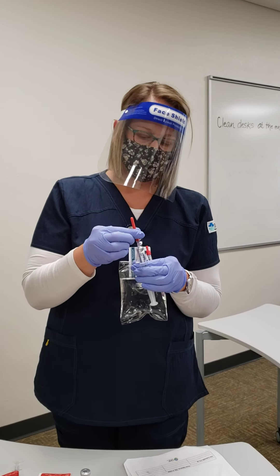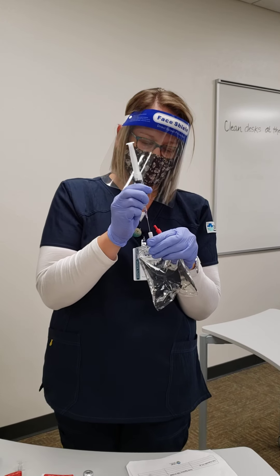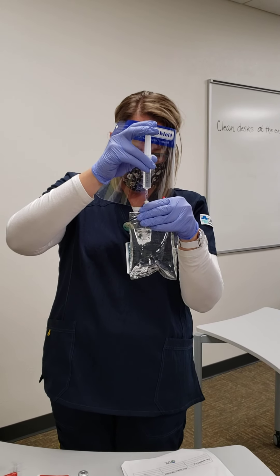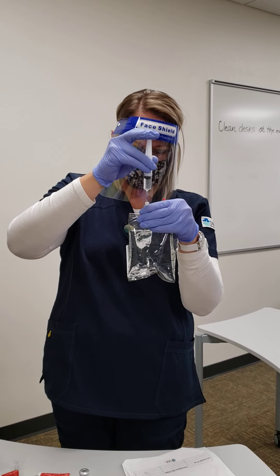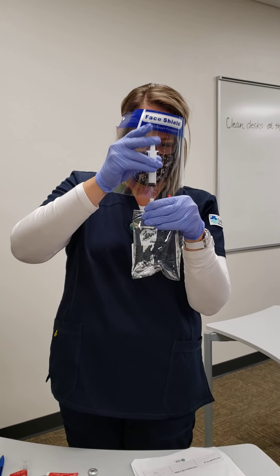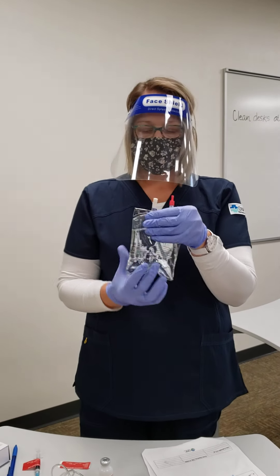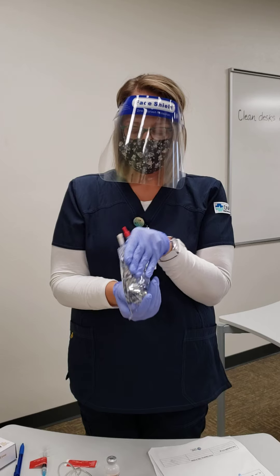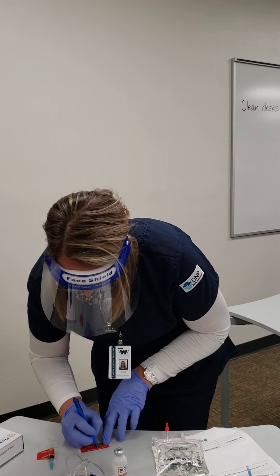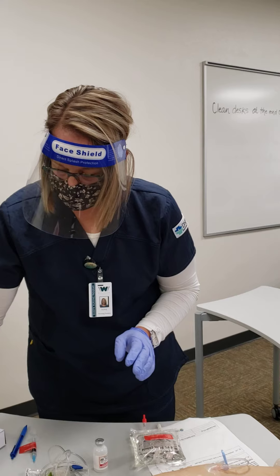Now I go ahead and take my needle and inject the potassium chloride into the normal saline, ever so carefully, making sure not to poke ourselves or the sides of the bag. Then we gently mix the bag back and forth to make sure it's mixed. I put a label on here with all the information required according to facility policy, and a name label as well.